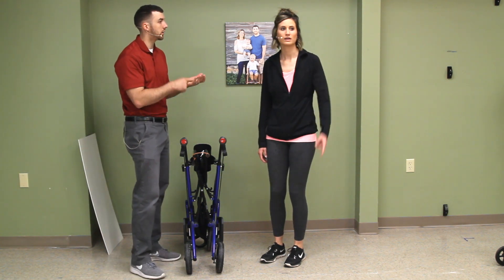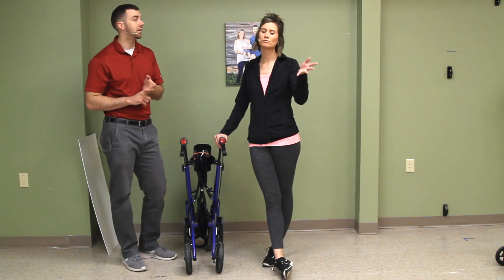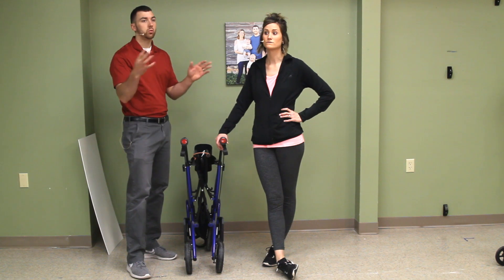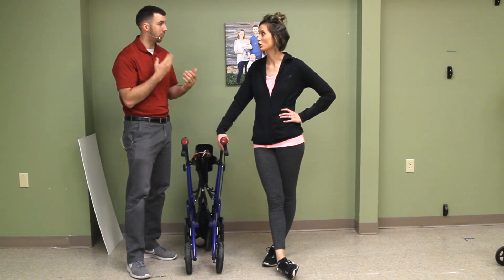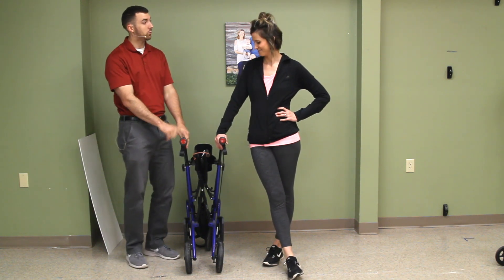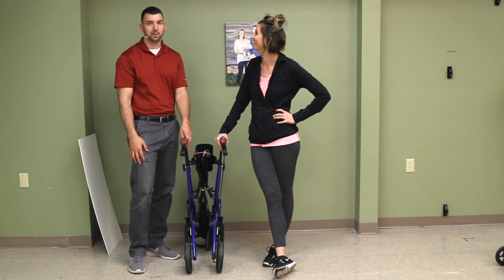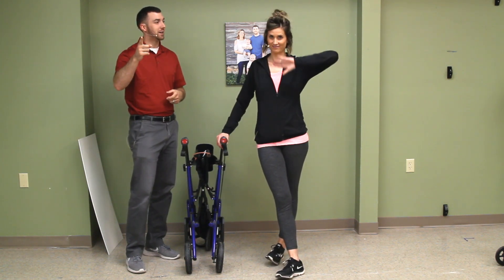It's about $206 to $300 depending on where you look — anywhere from $200 to $300, a little more on the Hugo site. Is it worth it to get grandma to the ball game to watch her grandson? Worth it. This will keep grandparents involved, or somebody who's had a debilitating accident. Thanks folks.